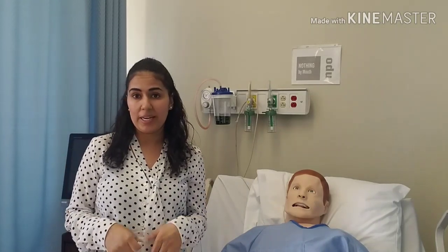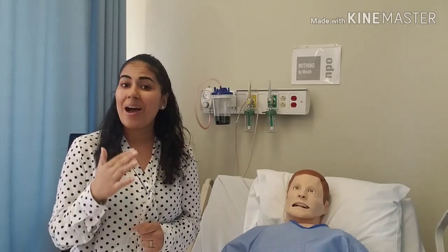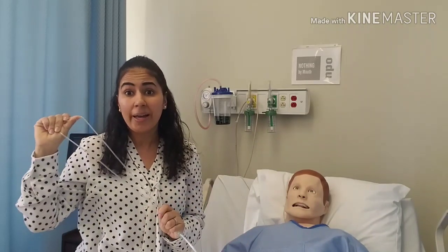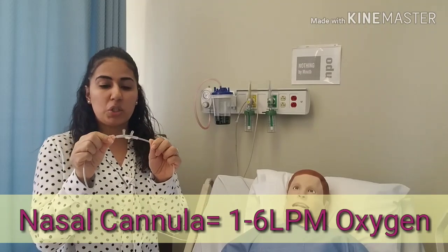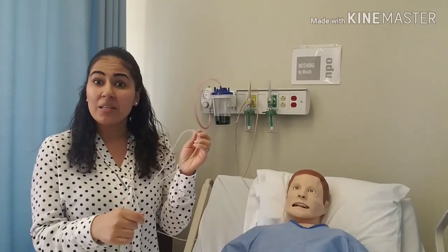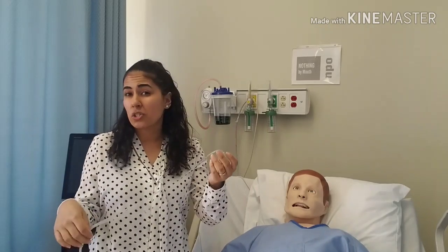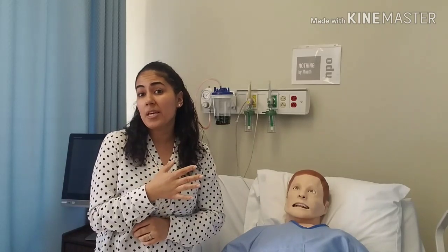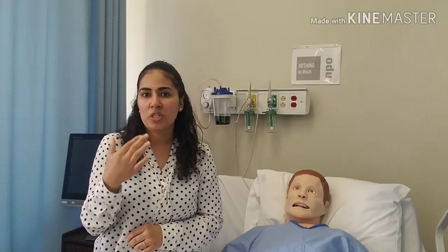How much does the nasal cannula deliver? Often my students say two liters because nurses can deliver up to two liters without a doctor's order — however, that's not the maximum. The nasal cannula can provide one to six liters per minute of oxygen. When a patient is on it long-term, we usually stop around four to four and a half liters, and you're always going to humidify that oxygen because it's very dry and irritating to the nares and can cause nosebleeds.